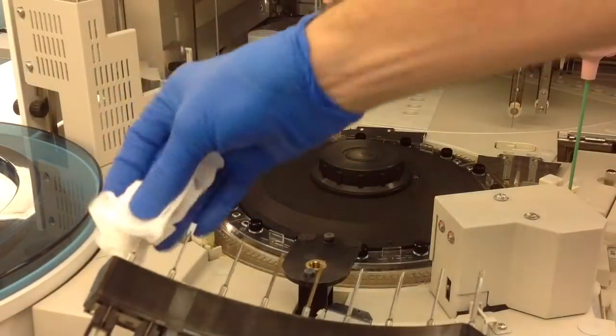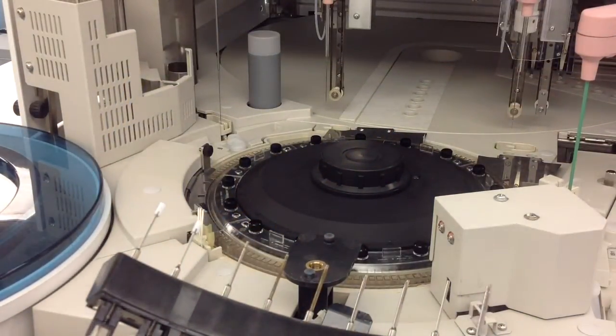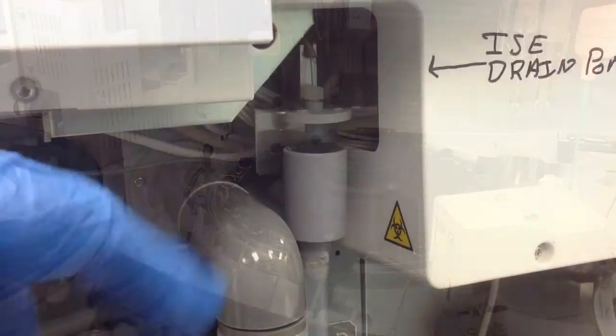I don't show it but after this just be as careful as possible reassembling it and make sure nothing's kinked.